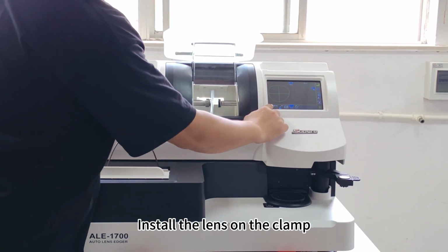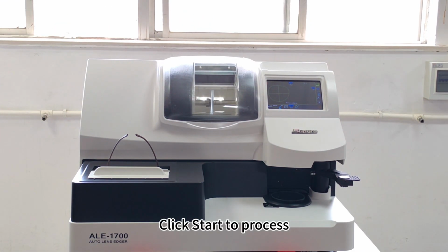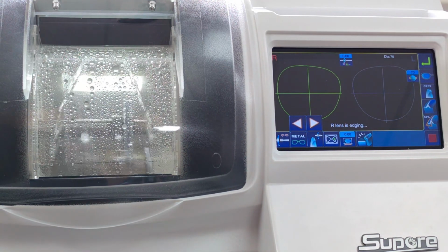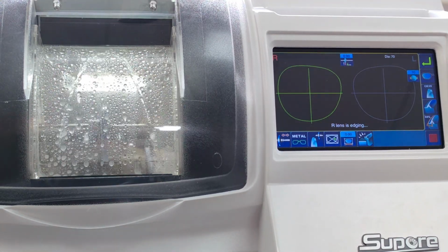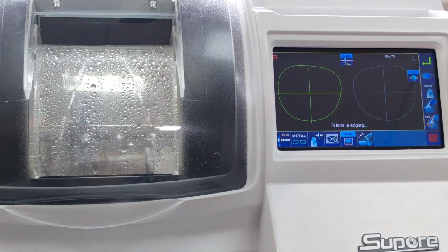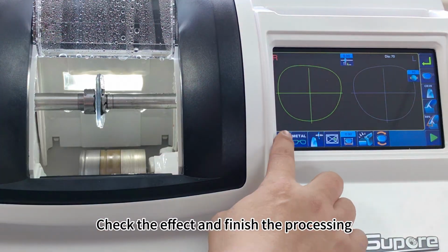Install the lens on the clamp. Click Start to process. Check the effect and finish the processing.